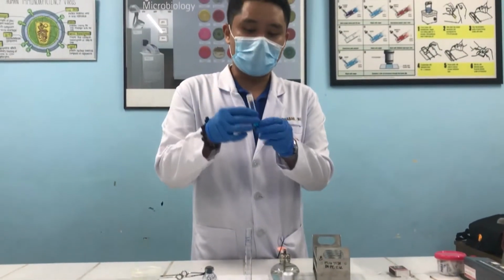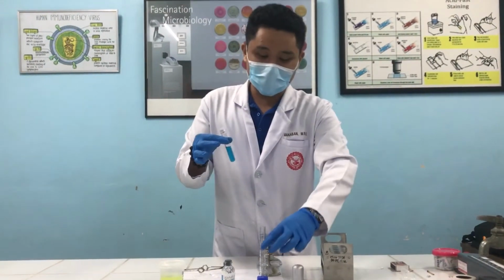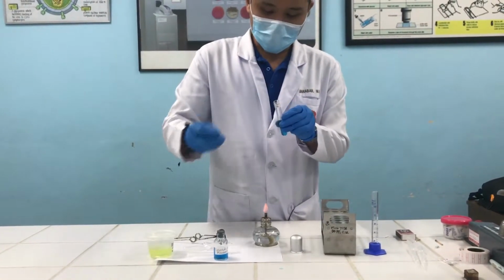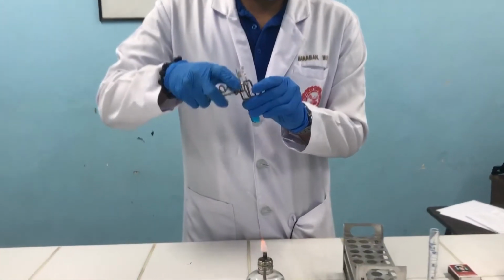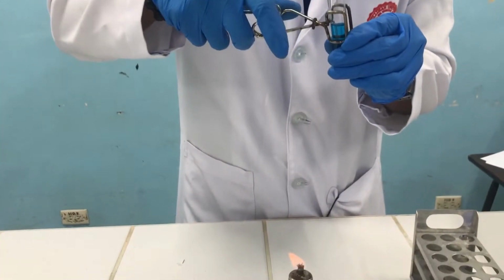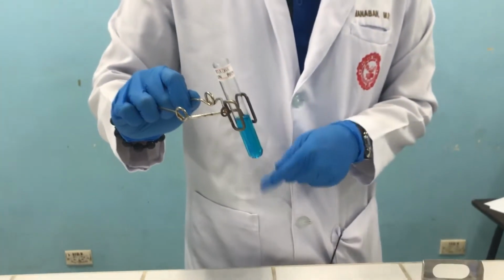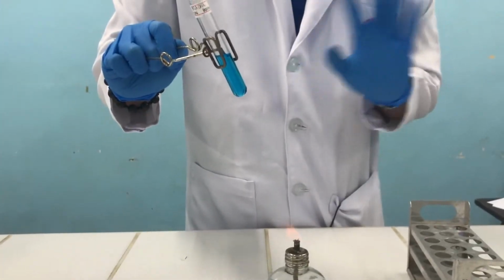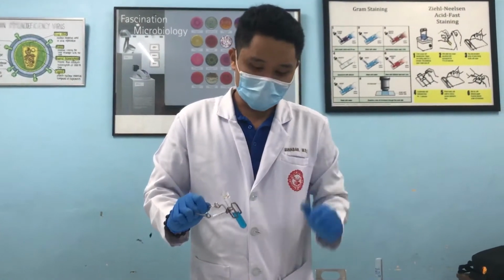For the next part, we'll now pass this tube through the flame for about 2 minutes. So there should be vigorous boiling for about 2 minutes. Before that, again, we'll remove the parafilm. And using a test tube holder, hold the test tube in the middle, like this. And pass the test tube through the flame until it boils for about 2 minutes. Again, the mouth of the tube should not be facing you or any of your classmates to avoid any injury.